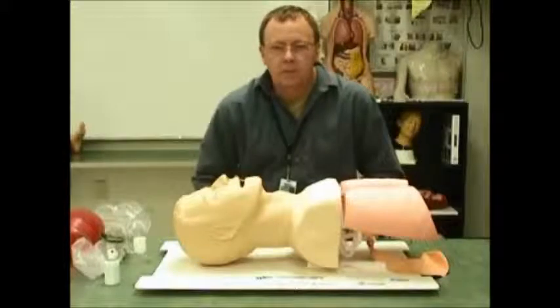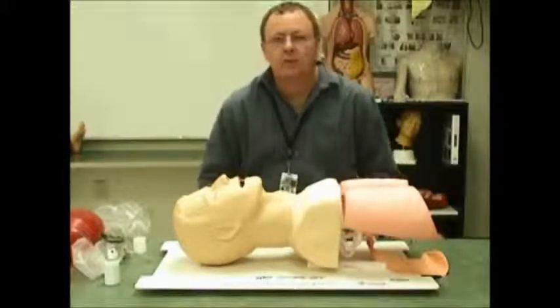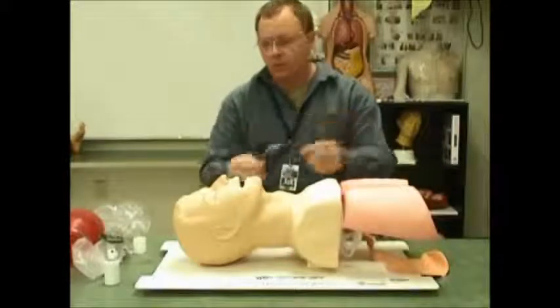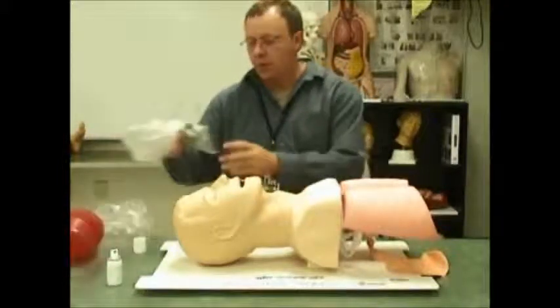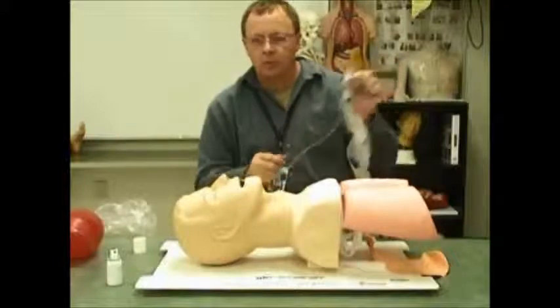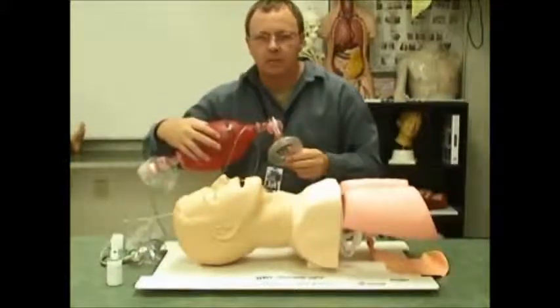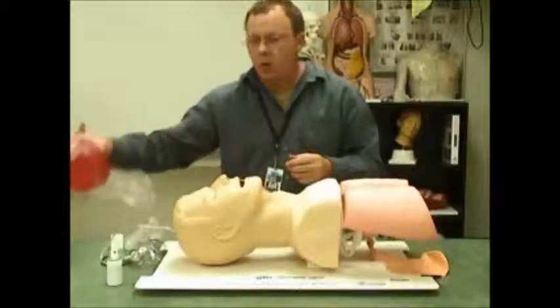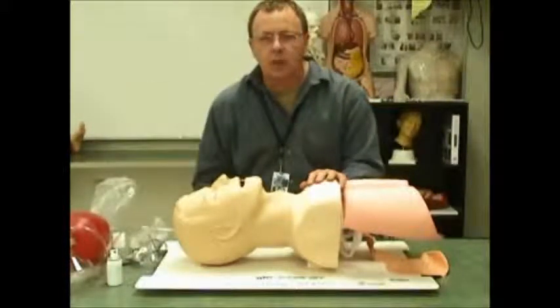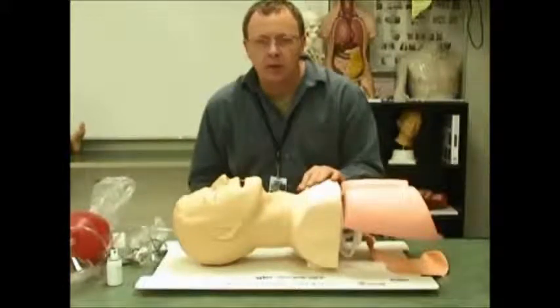O2 delivery devices. We'll be highlighting three of these devices: the nasal cannula, the non-rebreather, and the bag valve mask. Although there are other devices you can use to deliver oxygen, these are the three main types that will be used on the back of the ambulance.